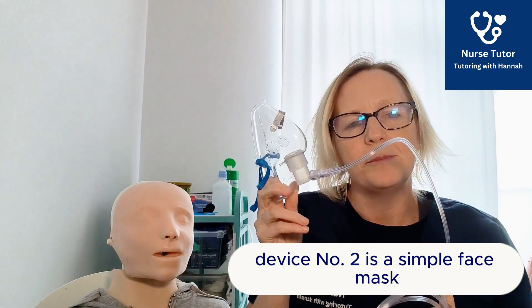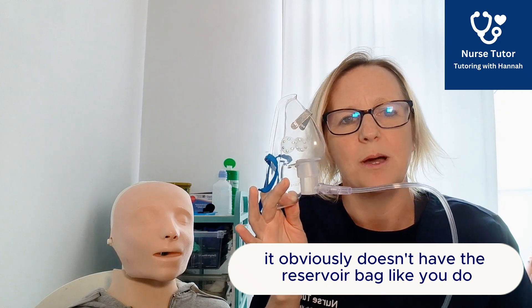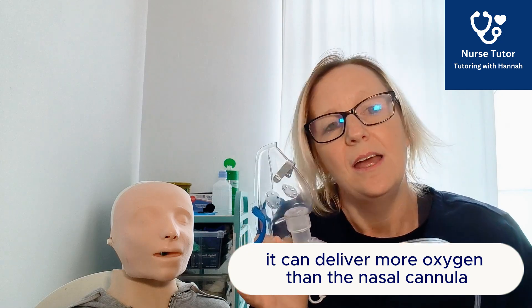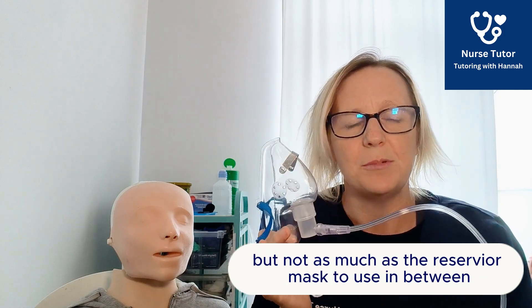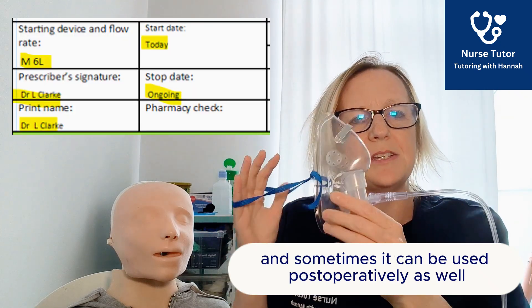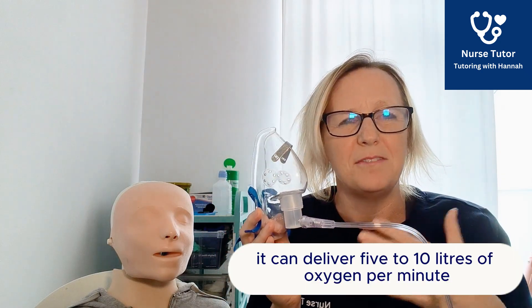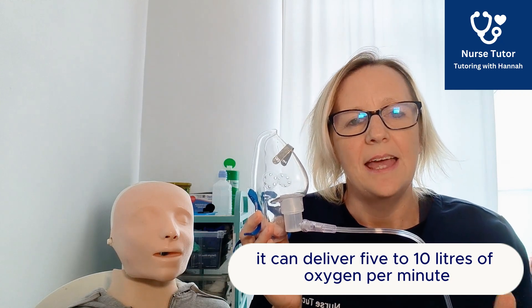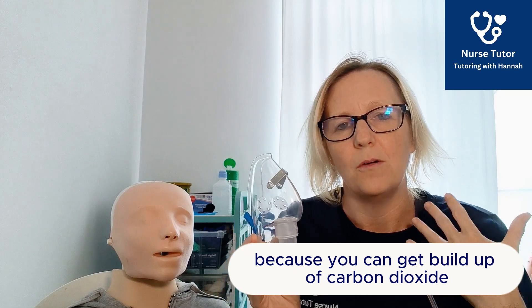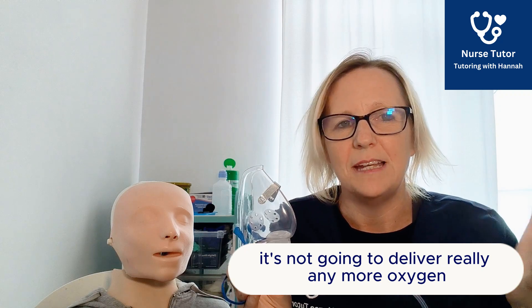Device number two is the simple face mask — just a standard oxygen face mask. It doesn't have the reservoir bag like the reservoir mask. It can deliver more oxygen than the nasal cannula but not as much as the reservoir mask, so it's used for patients with moderate hypoxia and sometimes post-operatively as patients come around from anaesthetic. It can deliver five to ten litres of oxygen per minute. You don't want to set it lower than five litres because you can get a build-up of carbon dioxide.